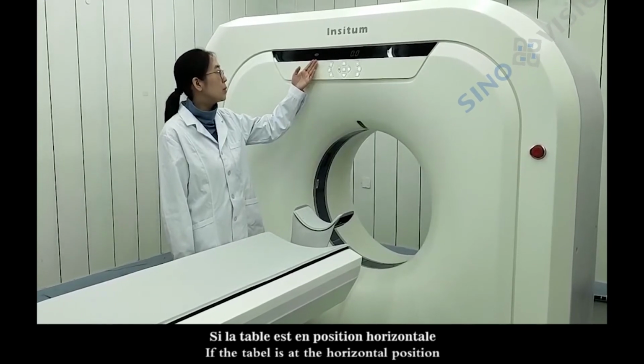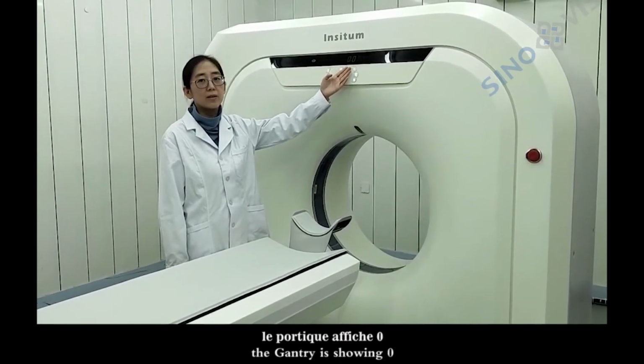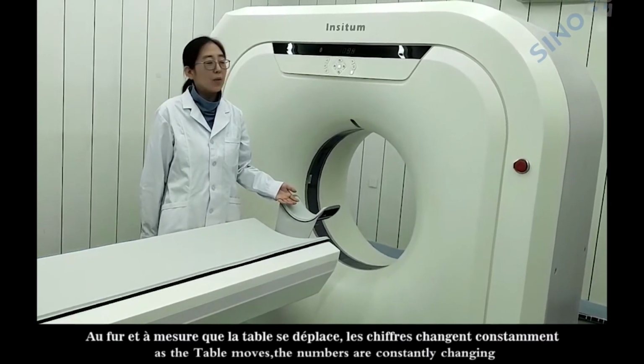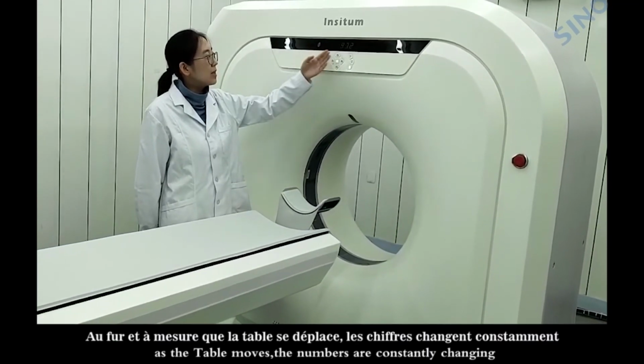If the table is at the horizontal position, the gantry is showing 0. As the table moves, the numbers are constantly changing.